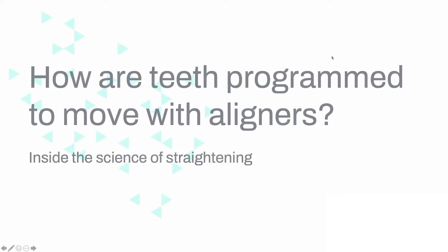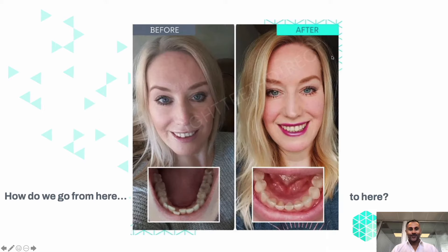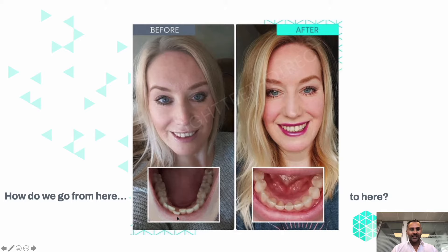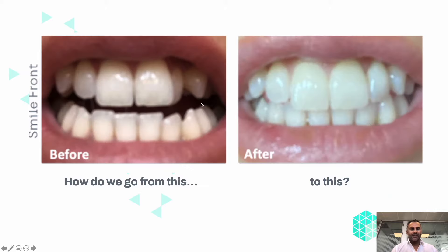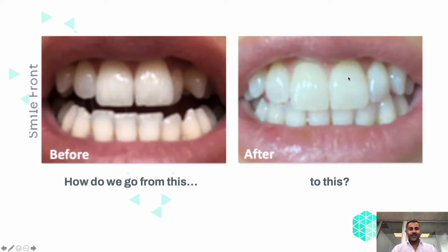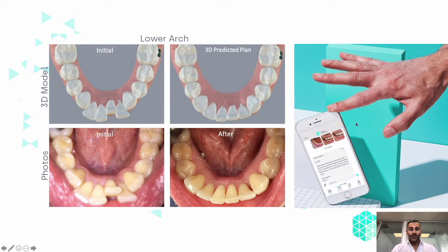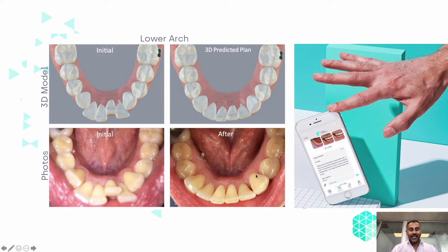I'm Dr. Alok and welcome to how teeth are programmed to move with aligners. We've seen images like this before, but how do we go from here to here, or even from this where a tooth is completely hidden to here? Once we understand how the process happens and you're supported by your digital dentist in your app, you too can get an improved smile.